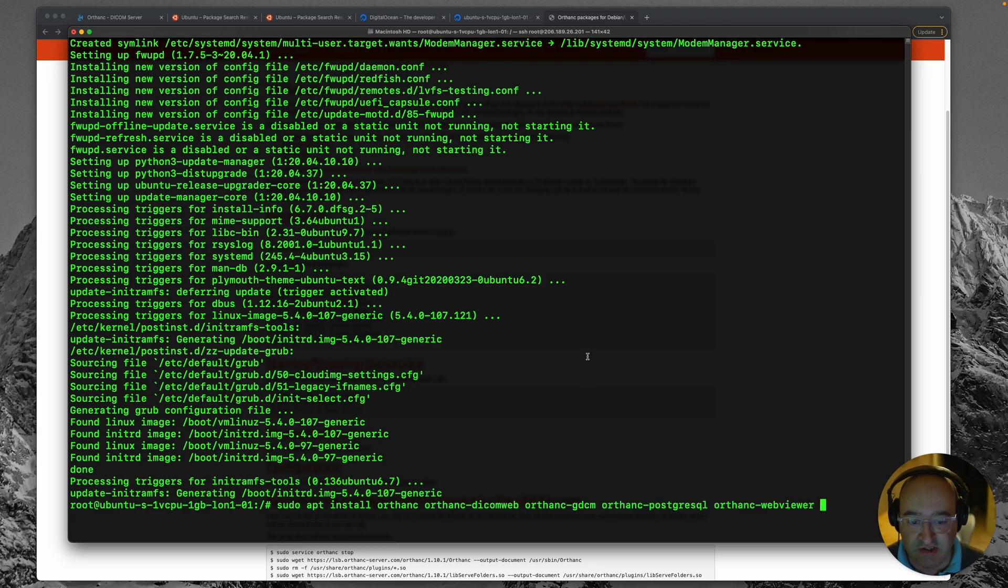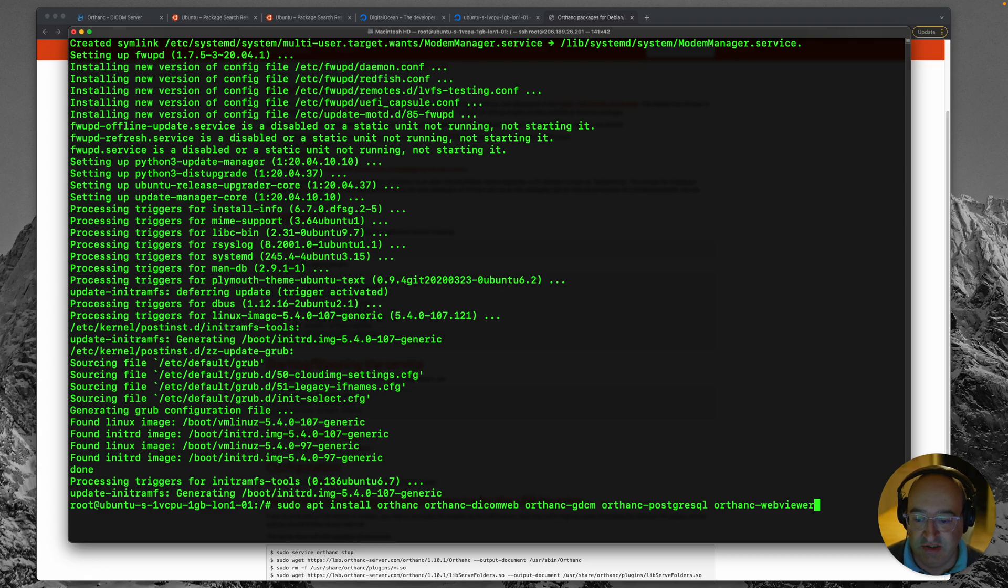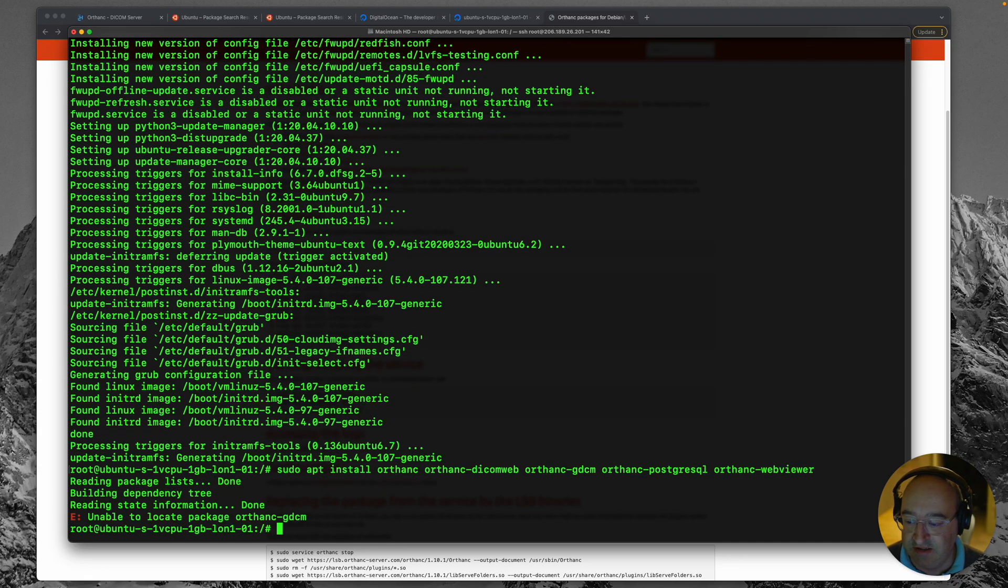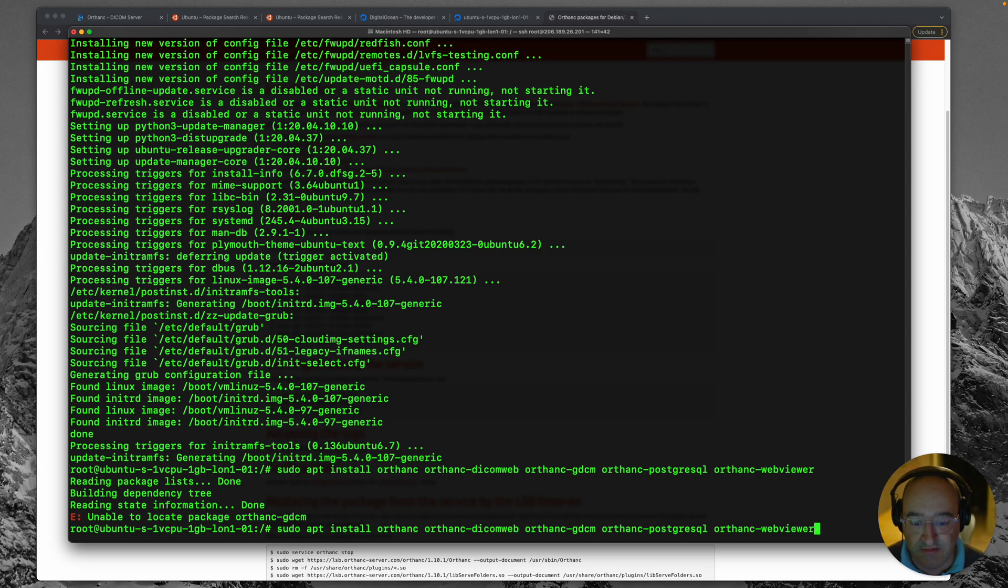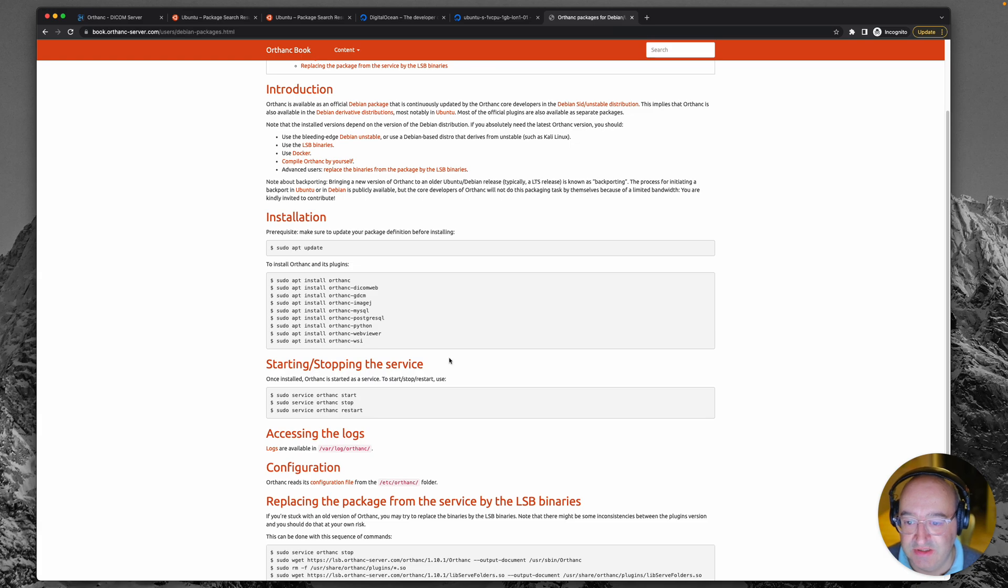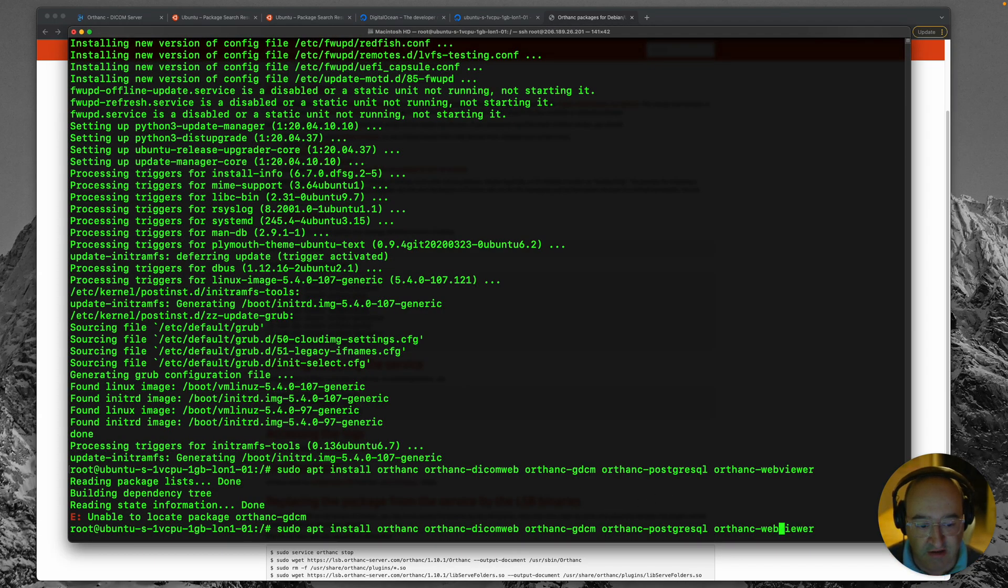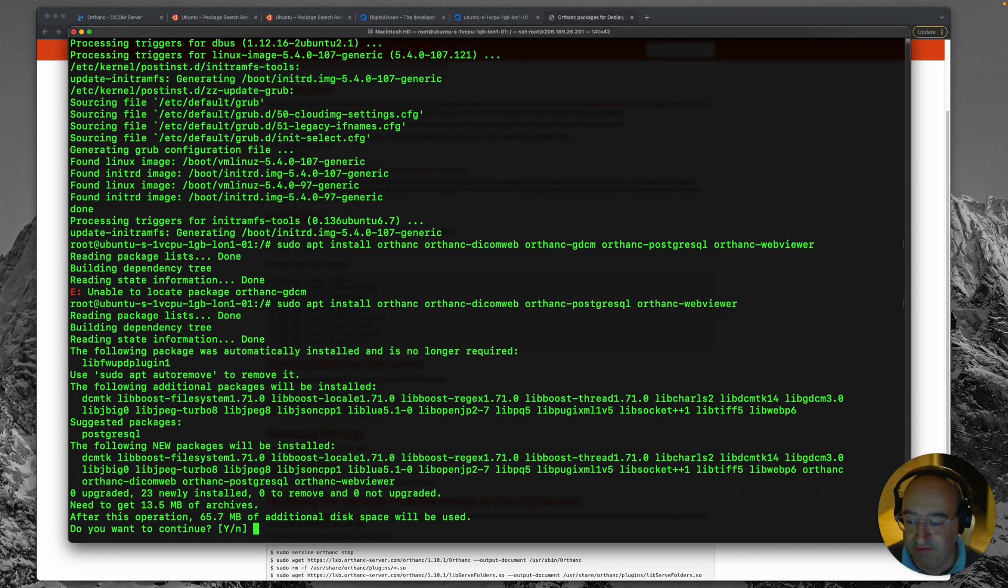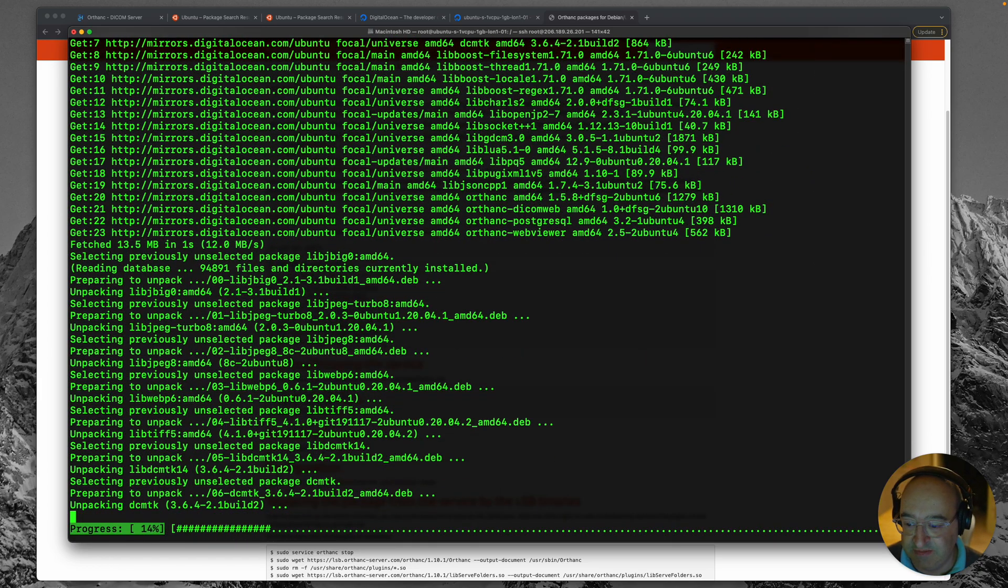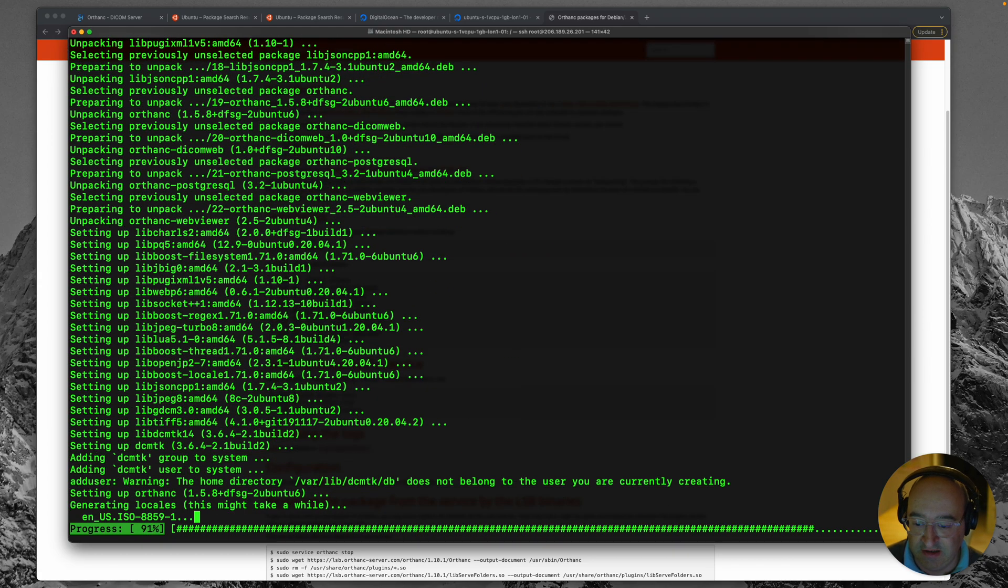Okay, so I've pasted in just the ones that I need. You could just put them all in but I know for a fact that I don't need some of these packages for what I'm doing. So I've gone for these ones. I'm going to hit enter and oh, that's great. It's missing one of them. gdcm, which is ironic because that is straight from Orthanc's own website. Okay, I don't really know what that package does. Let's just get rid of it and see if it works without it. So again, it's prompting us do we want to use disk space for these packages? Yes. And off it goes again.